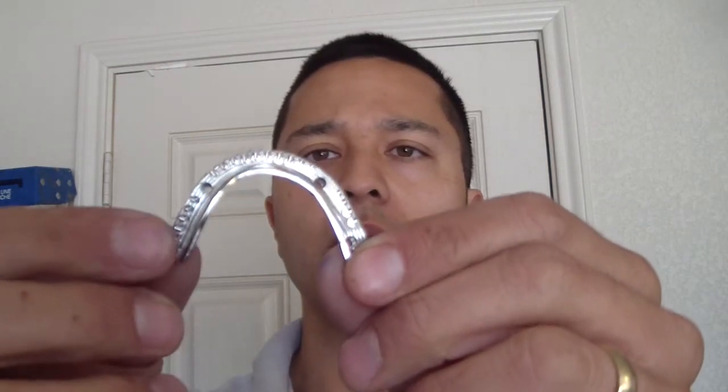So we decided to have a bar built and give her a fixed acrylic denture on the maxilla. One of the reasons is because of the angulation of the implants — she's having difficulties with the O-rings always coming out. That was another part of her chief complaint, just being unhappy with that. So we decided to have a bar milled. Here it is, a titanium milled bar.